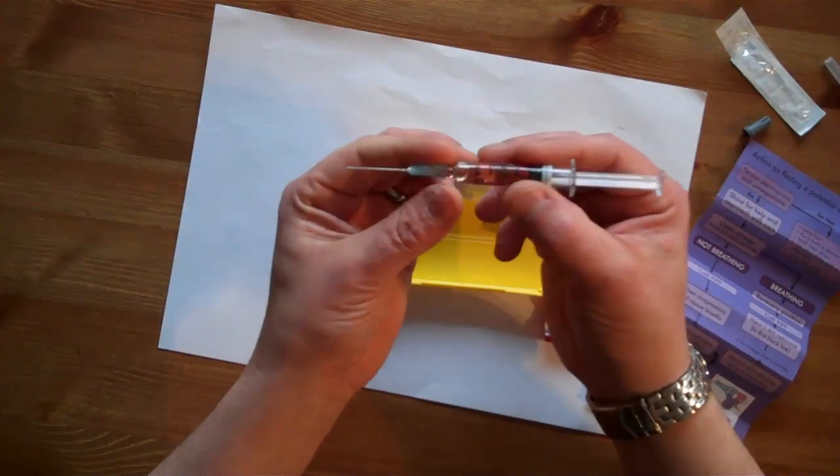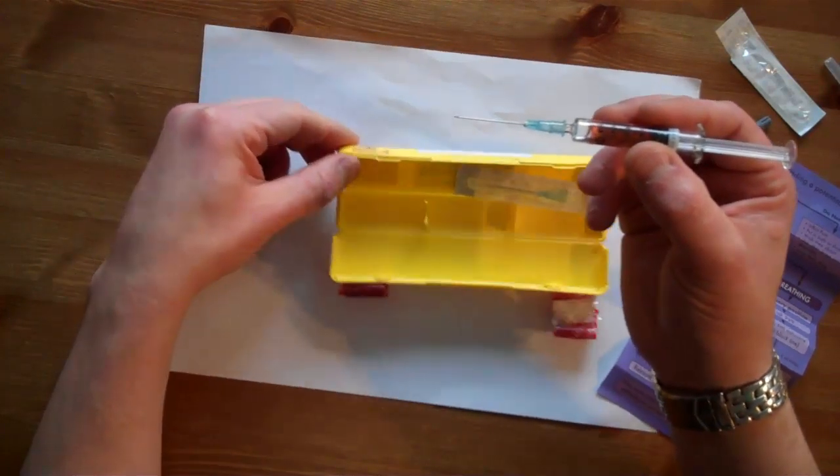The kit's now assembled and ready to be administered into a casualty.